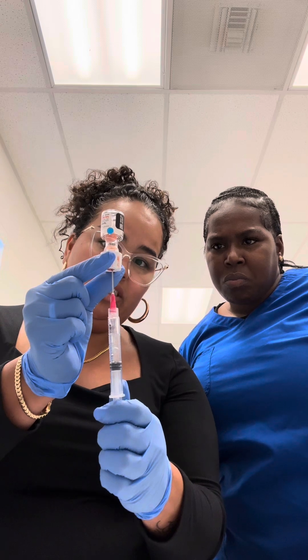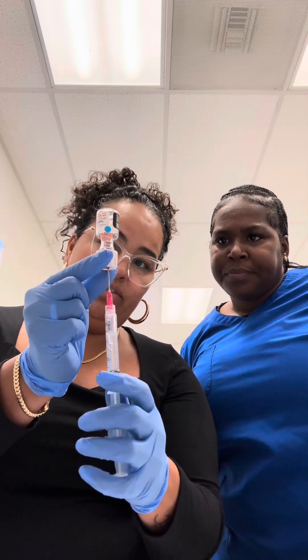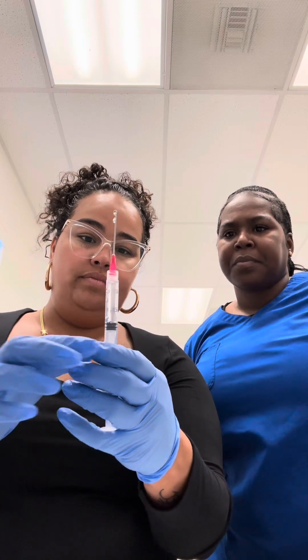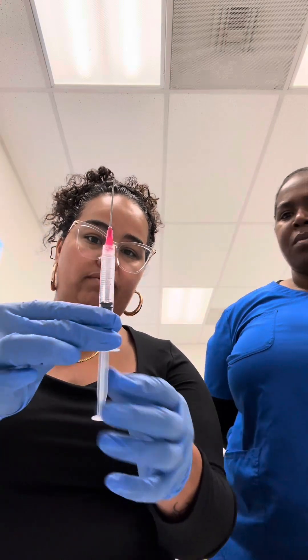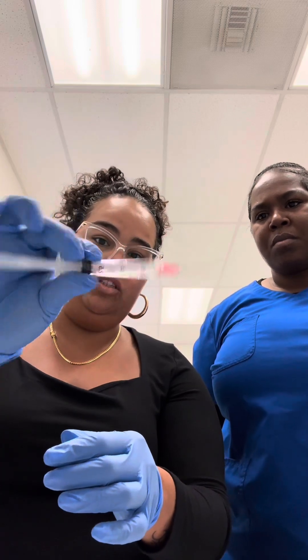Get all your medication — waste nothing. It's a good steroid that helps with inflammation. You see I have all this air right here — that's totally okay, because you can manipulate it. Clear all your bubbles by inverting. It makes it easier if you leave some air in there when you have that ability to do so.